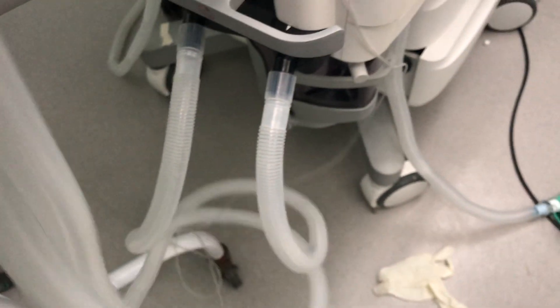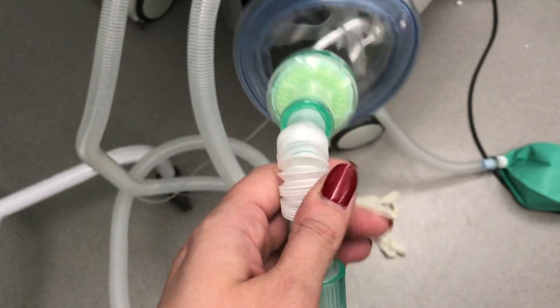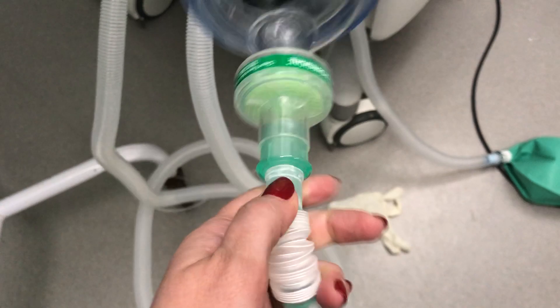Following the circuit out, you can see it connects at the wye connector, with a little extension piece.